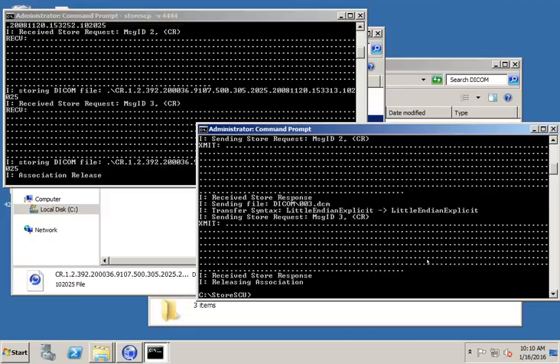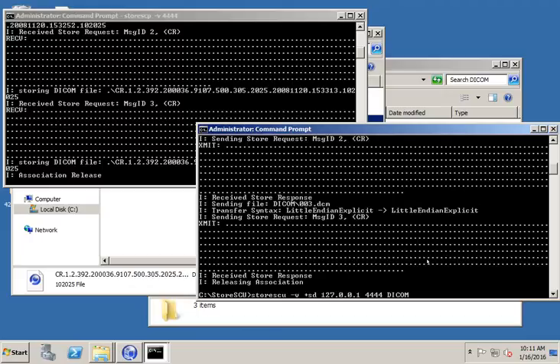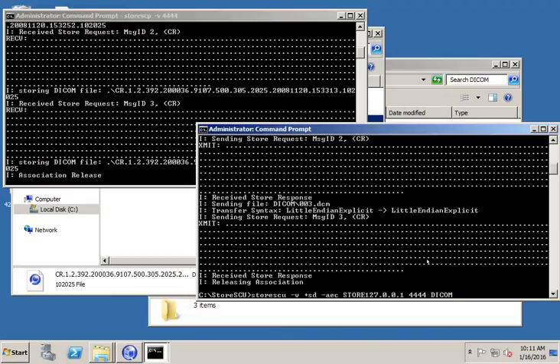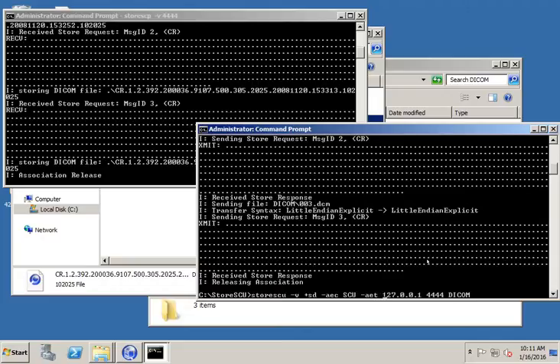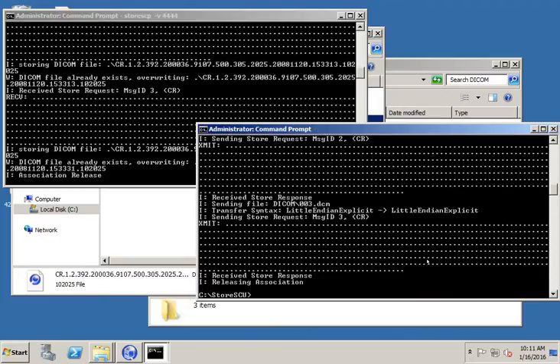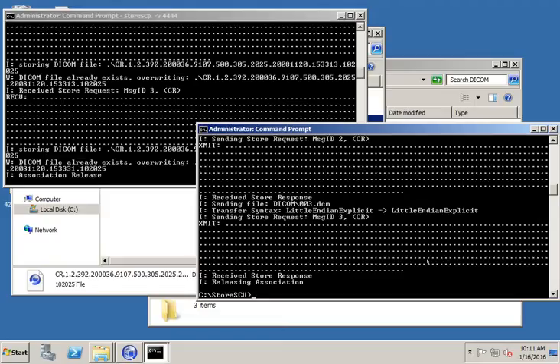Now let's try something else. One thing you'll notice is I'm only sending using an IP address and a port number. So it's using the default AE titles that are built into storeSCU. But you don't always want to use the default AE titles. A lot of times you want to try to mimic a DICOM node on your network sending to your PACS. So you want to mimic some node. There are a-calling and called AE titles. So you can define those with some switches. So we'll do AEC. I'll call this, or actually, let's keep it simple. I'll just call it SCU. And dash AET. And I'll call it SCP.